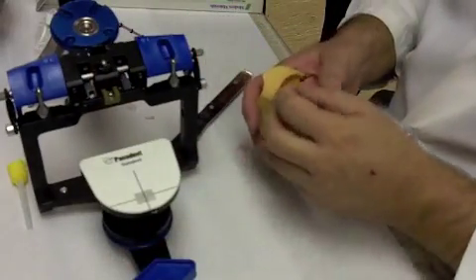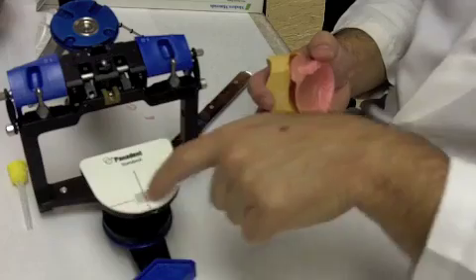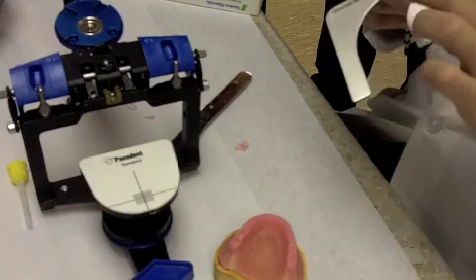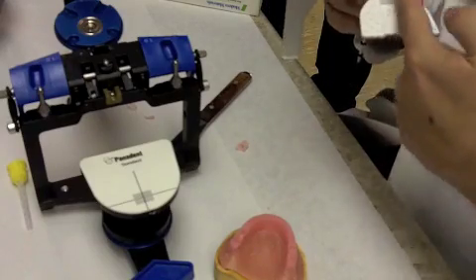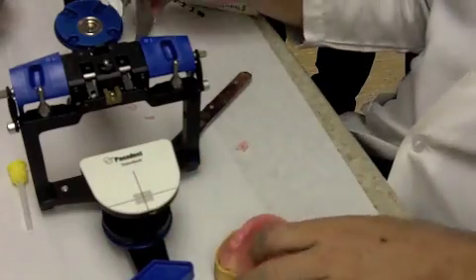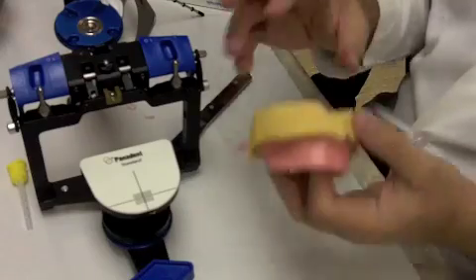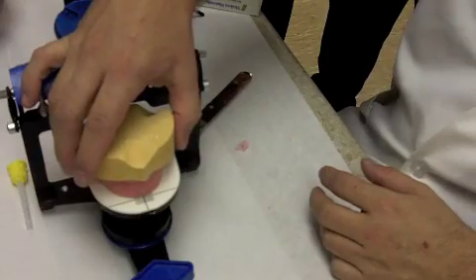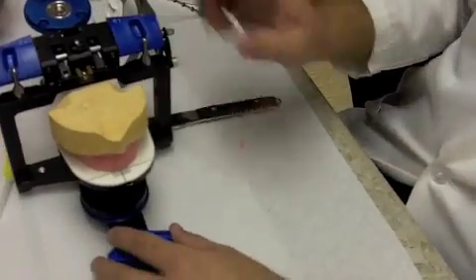The only thing you're missing is any kind of a plane, so we will be sending these things to a relatively flat plane, whereas with the facebow, most of the time you're going to have a little bit of an incline anterior-posteriorly with it. But there's a notch on the facebow that orients things to the midline, and on ours we have this little midline line.